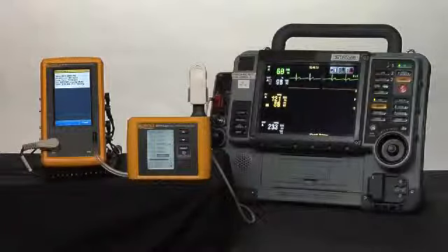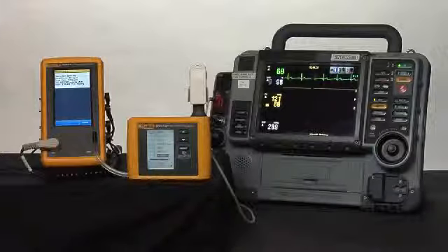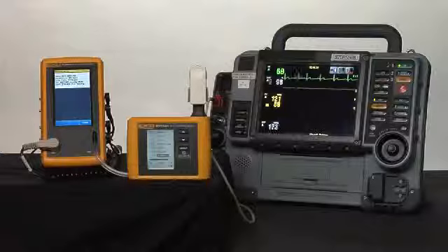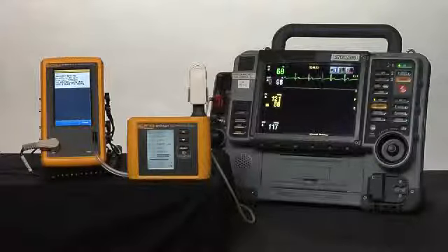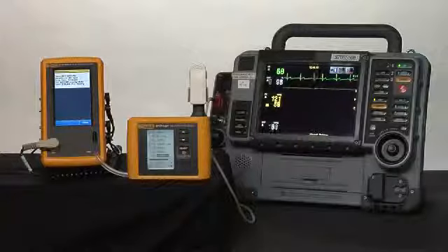We're comparing those against the displays on both ProSim 4 and SPOT Light so that we have our waveform, normal sinus rhythm, a heart rate of 60, a respiratory rate of 20, an IBP, invasive blood pressure, of 120/80, an NIBP of 120/80 with a mean of 93, and our oximeter value should be 98% and a heart rate from SpO2 of 60 beats a minute.